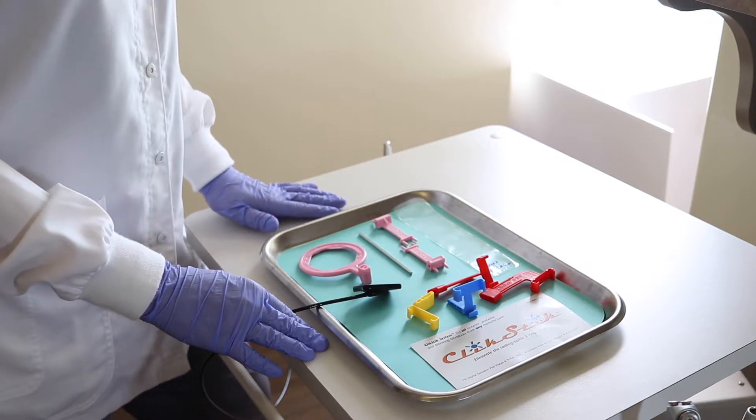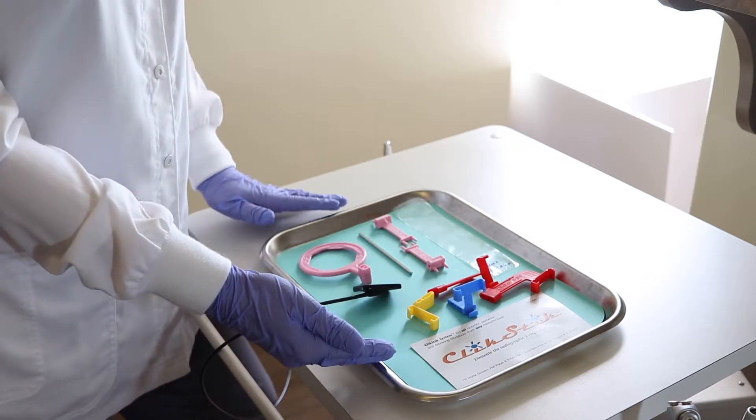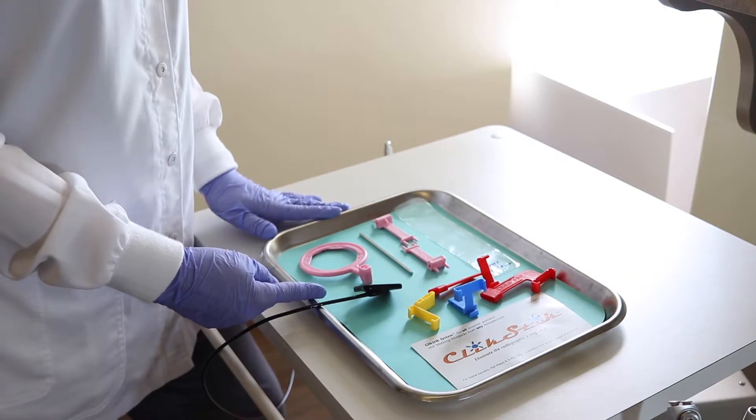Hi, my name is Susan Bateman and today I'm here to demonstrate one of the two sensors you'll be receiving with your Dentimax Dream Sensor.